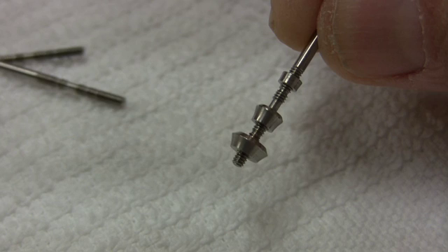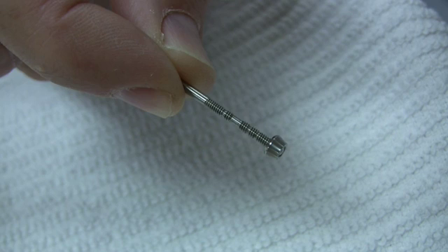These collars are made in three diameters: 3.5mm, 4.8mm, and 6.5mm. They are all compatible with the 2.2mm threaded probe. The diameter of the threaded probe is 2.2mm.